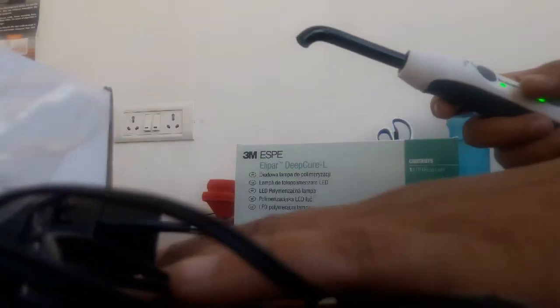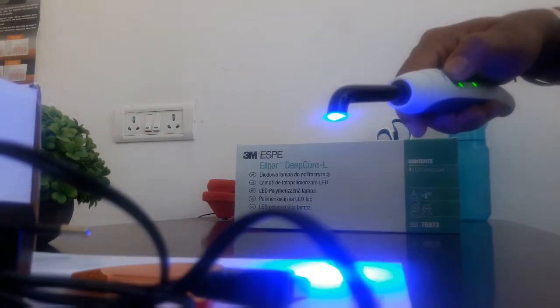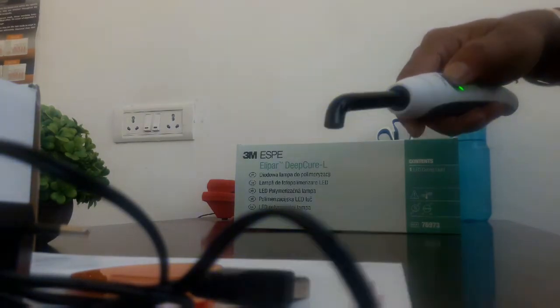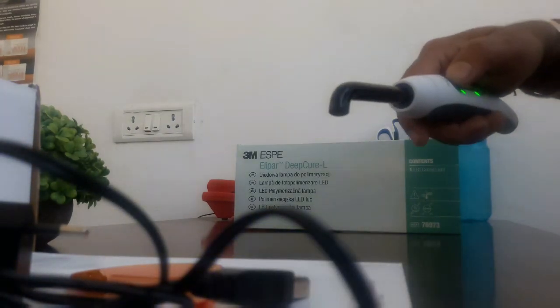We have a start button. The green button is for the timer: 5 seconds, 10 seconds, 15 seconds, 20 seconds, then back to 5 seconds. I'm going to demonstrate, so yeah it's working.